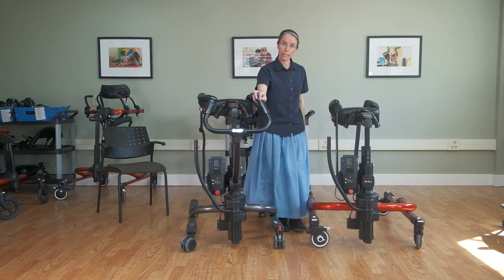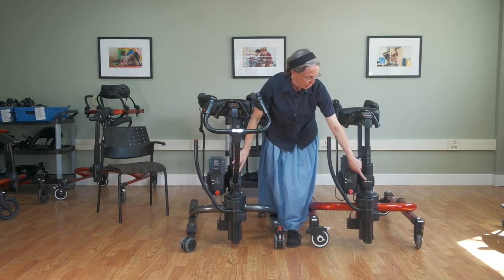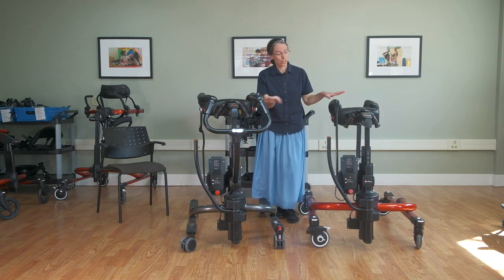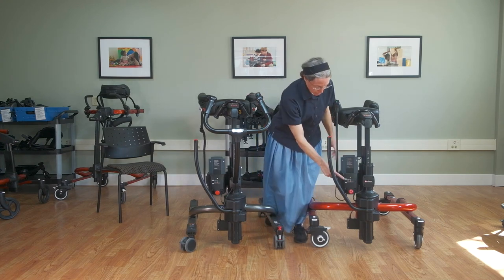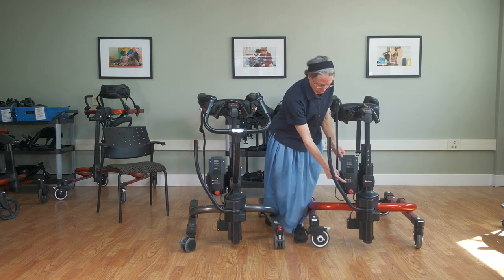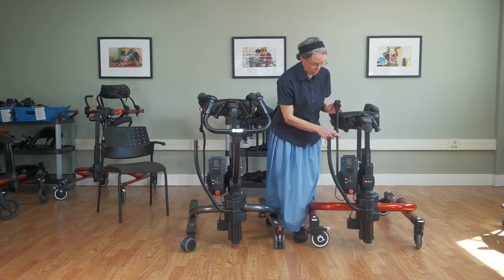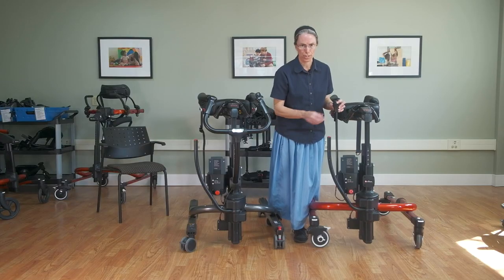The caregiver handle is part of the product with the TRAM. It's an add-on accessory with the e-Pacer, so the base price of the e-Pacer is actually a little lower because you could potentially do your raising and lowering right on the battery housing — either the switch pole or the caregiver handle is an optional add-on accessory.